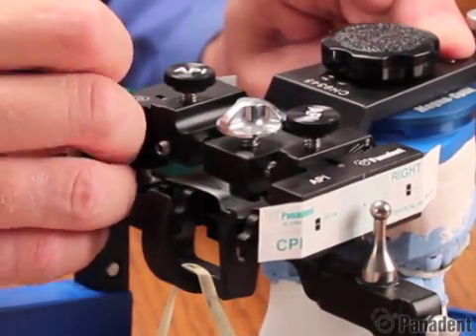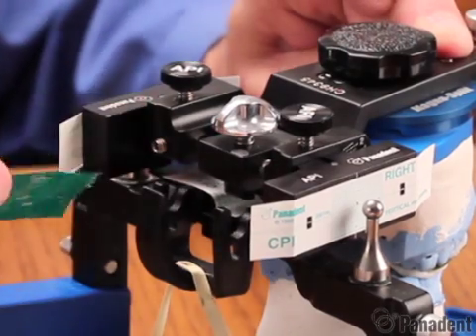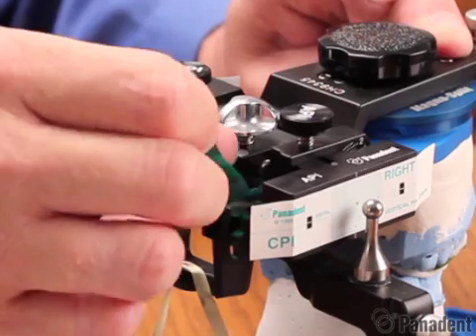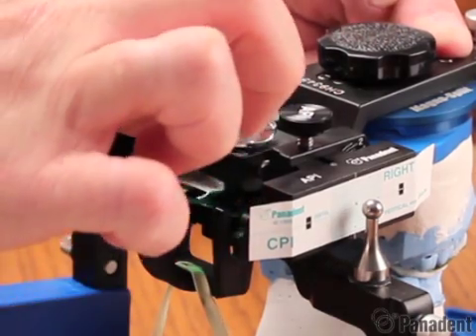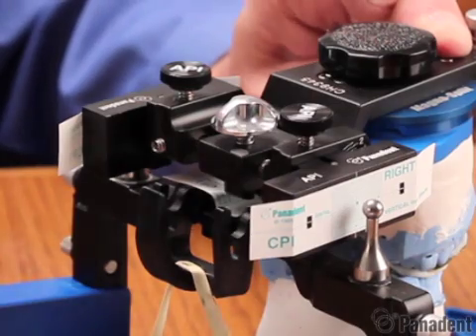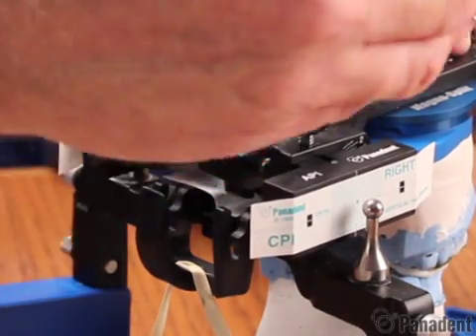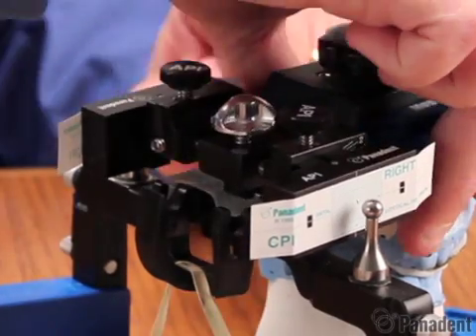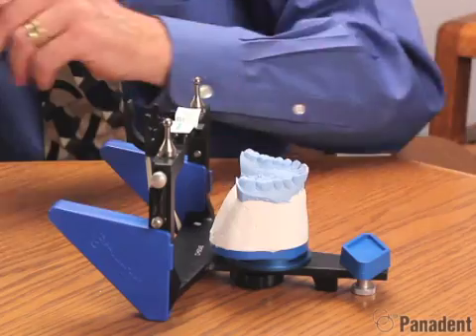We'll do that on both sides and also mark the horizontal graph at this time. Since this is the centric relation record we mounted the cast with, I expect the dot to be on or very close to the crosshair of the graph paper. We can then go ahead and remove the centric relation record.